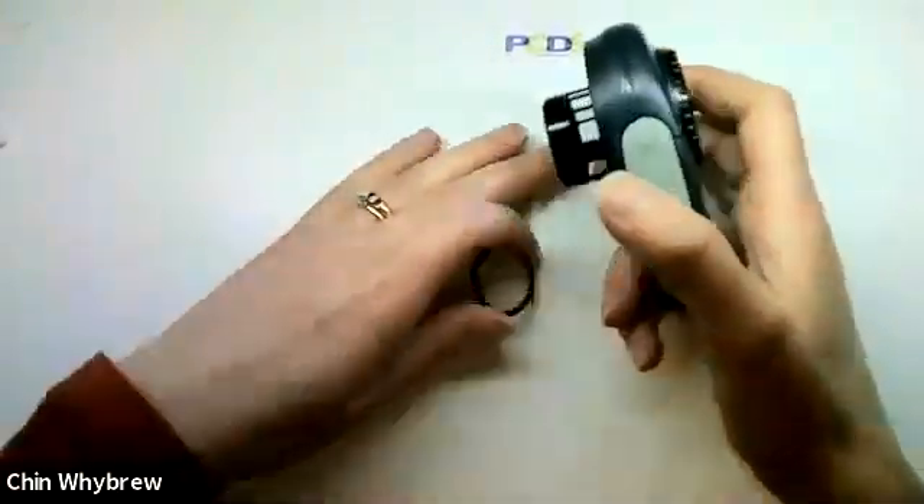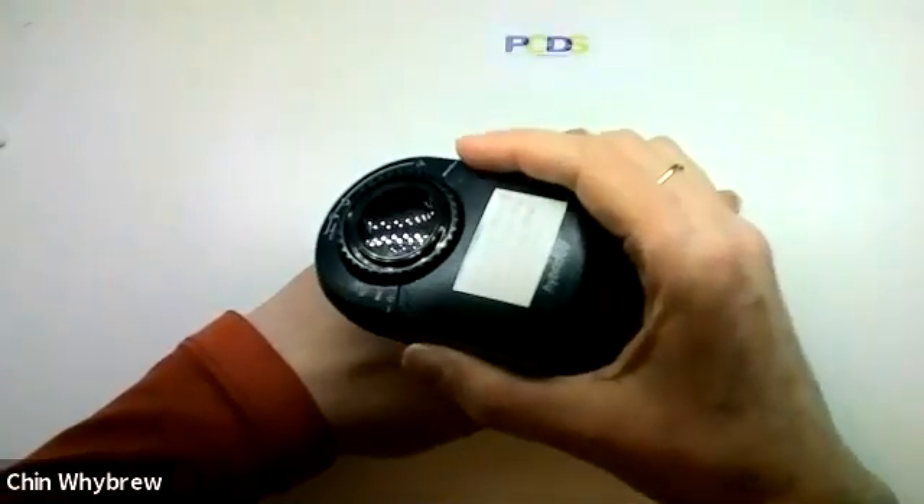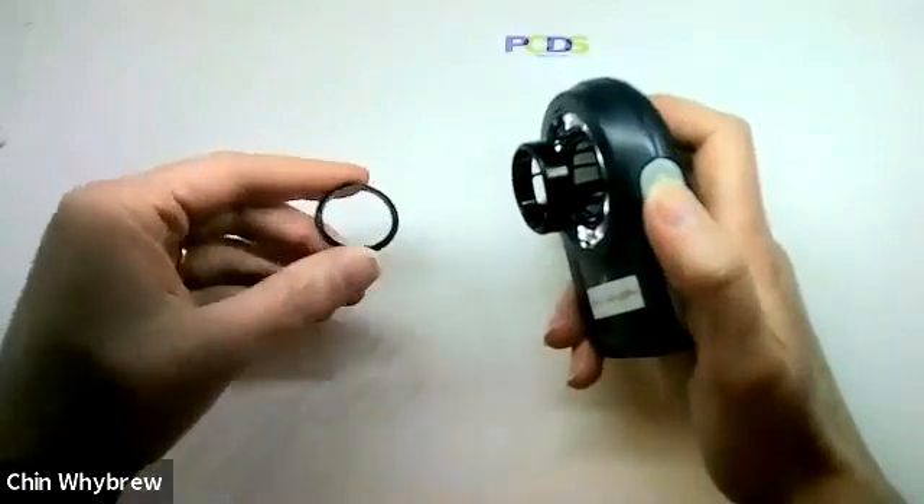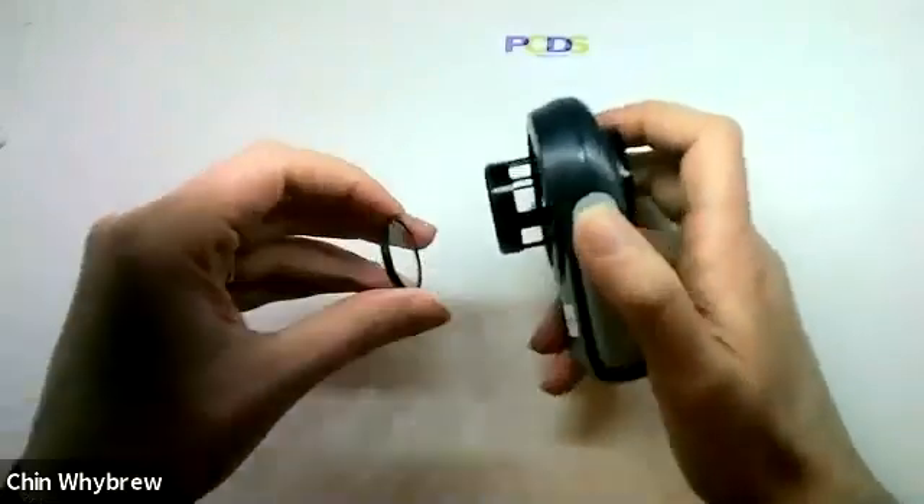But it does allow you to clean the end plate, and you still have this bit sticking out so that you can use it in polarised mode to look at lesions that have vessels on the surface that you don't want to compress.